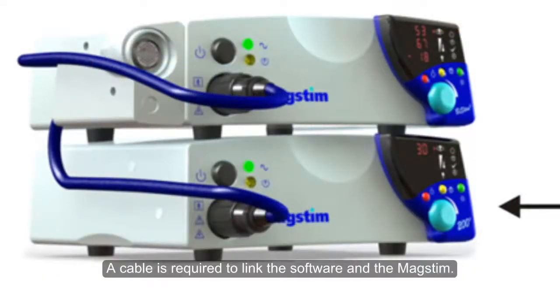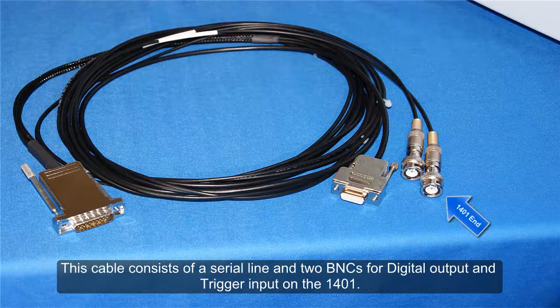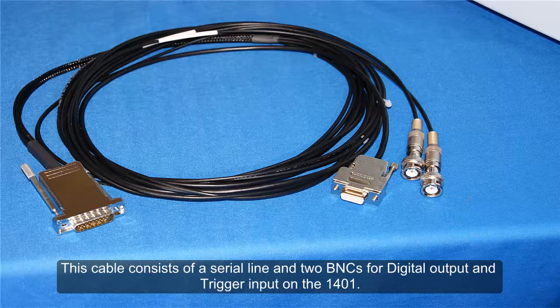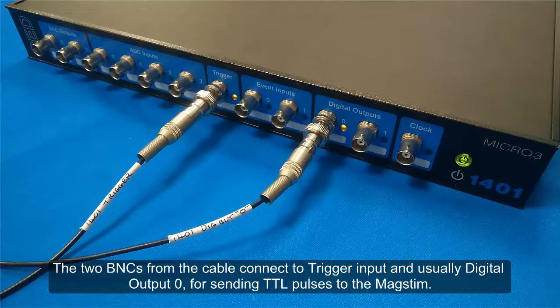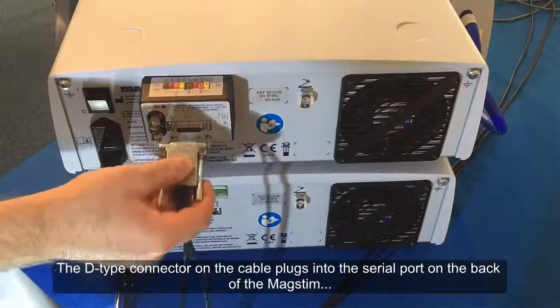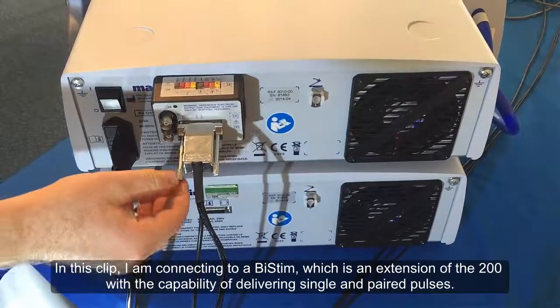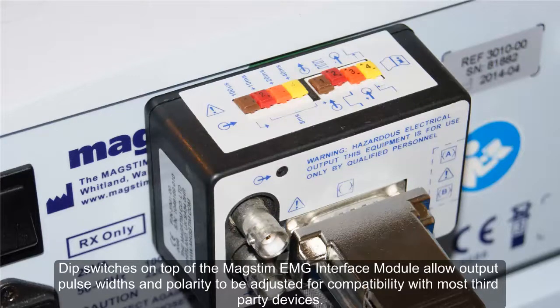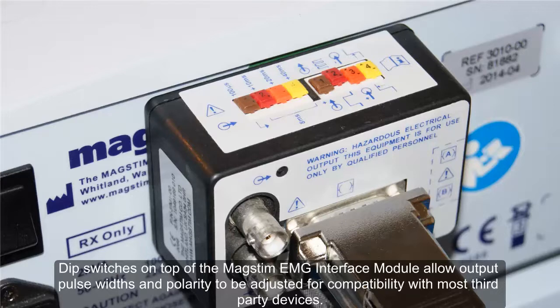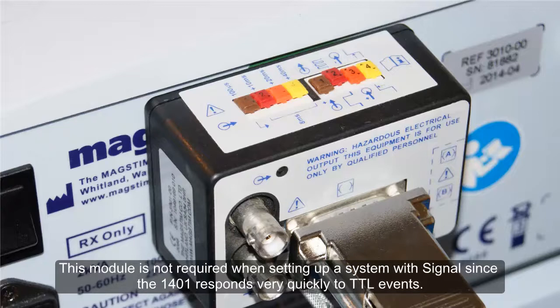A cable is required to link the software and the MagStim. This cable consists of a serial line and two BNCs for digital output and trigger input on the 1401. The two BNCs connect to trigger input and usually digital output zero for sending TTL pulses to the MagStim. The D-Type connector on the cable plugs into the serial port on the back of the MagStim. In this clip I'm connecting to a BiStim, which is an extension of the 200, with the capability of delivering single and paired pulses.